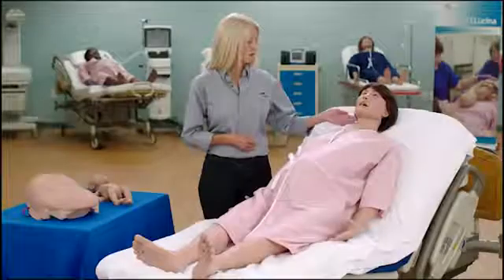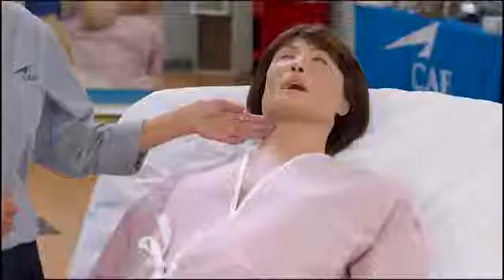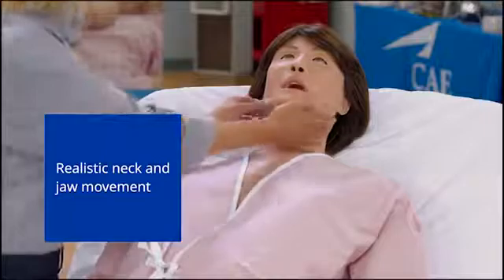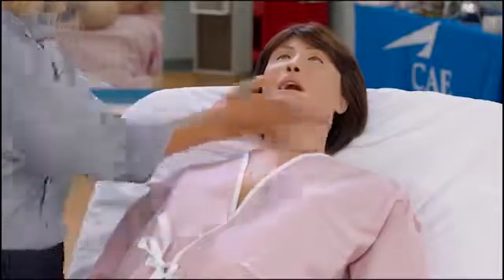Moving down to the airway, Lucina has realistic neck and jaw movement. Her airway anatomy allows for bag valve mask ventilation and placement of airway adjuncts, endotracheal intubation, and right mainstem intubation with detection. Lucina supports passive and triggered mechanical ventilation.